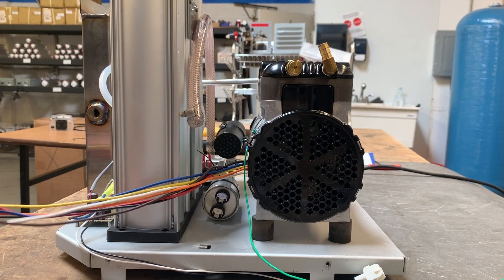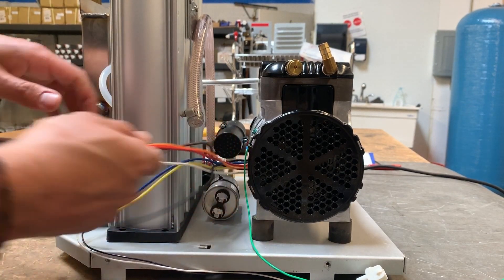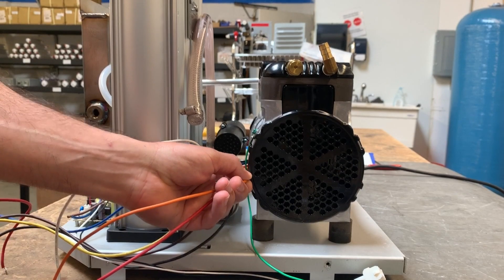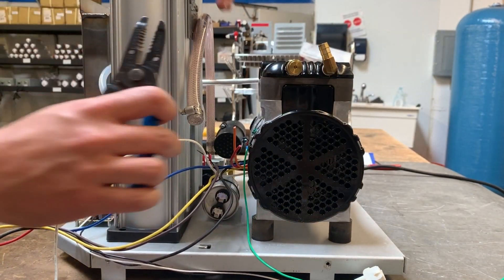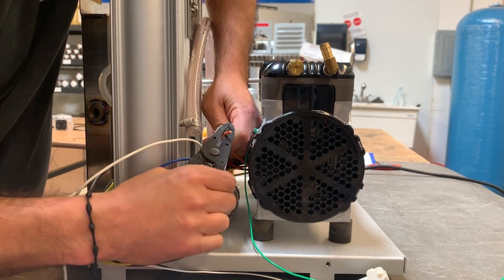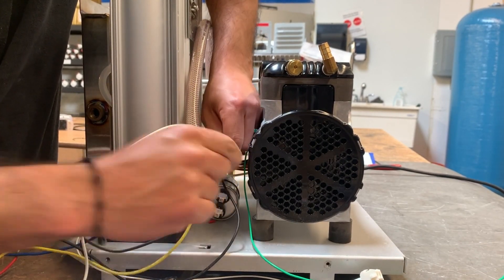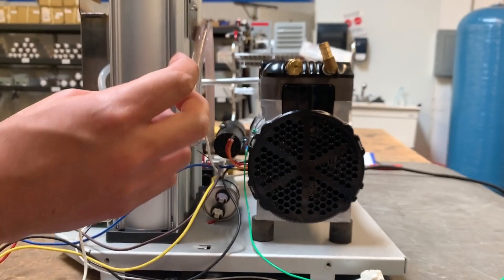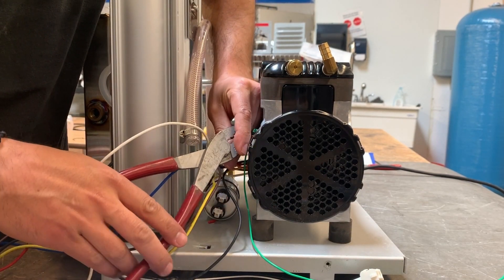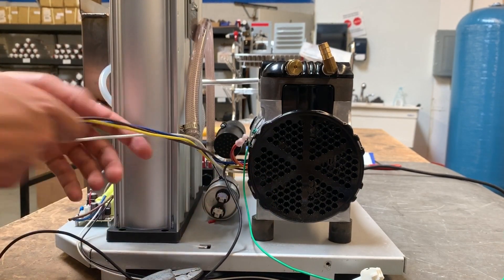This new compressor has way more wiring than your previous one. Grab the orange and red wires — pull them out towards the compressor, cut there where the compressor ends, and cut those two. Strip both ends. Once you have them both stripped, unite them and use the pink connector that you'll receive in your kit. Crimp those together with your crimping tool, give it a nice squeeze, and do a tug test to make sure you got the crimp right.